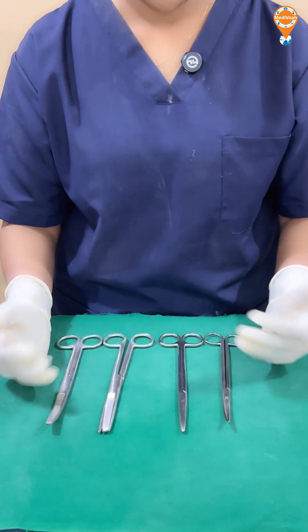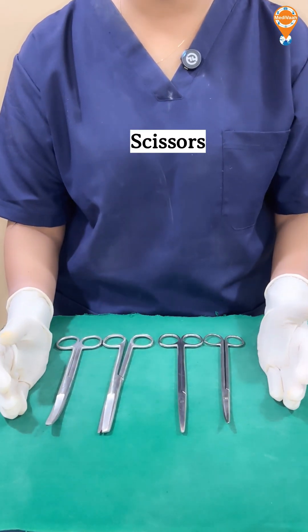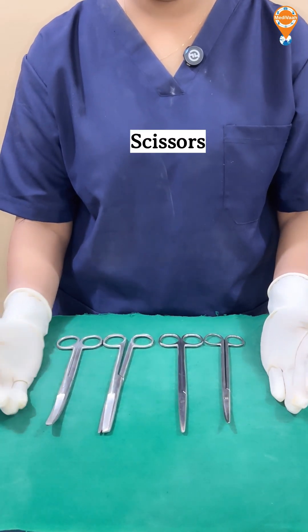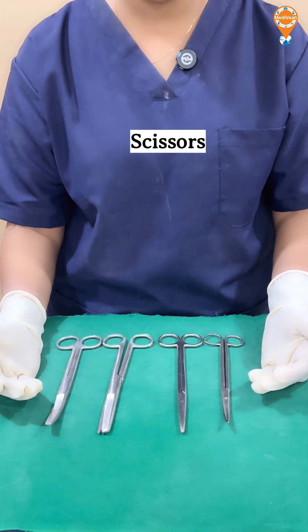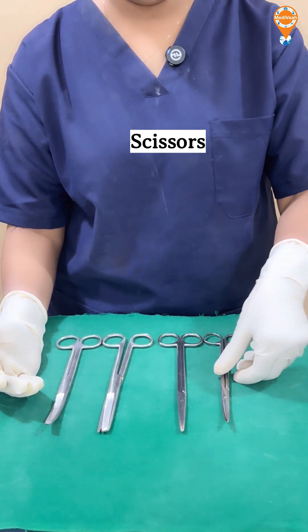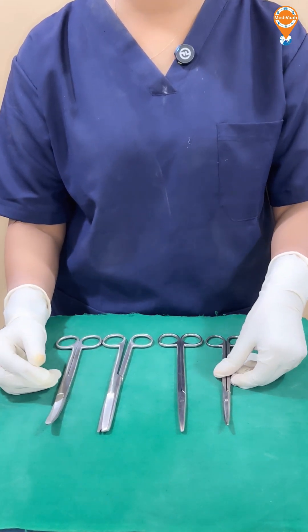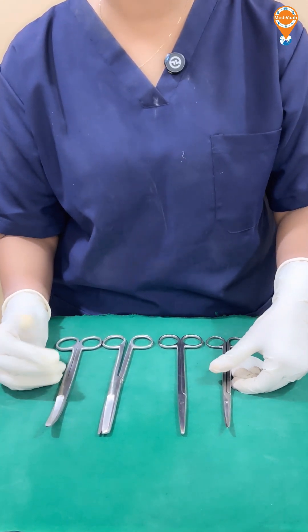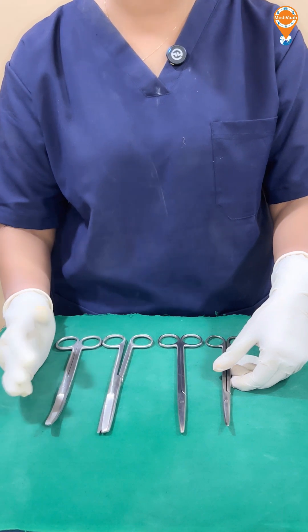Here we have pairs of scissors which are commonly seen and used in our clinical setup. There are different types of scissors based on the purpose, and they come in different sizes and shapes.